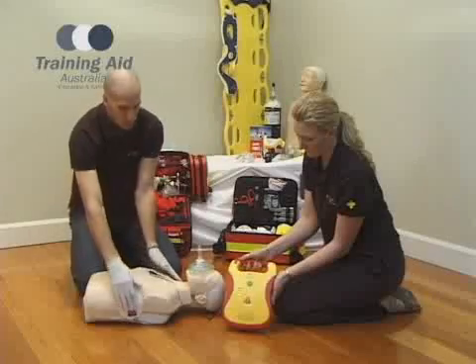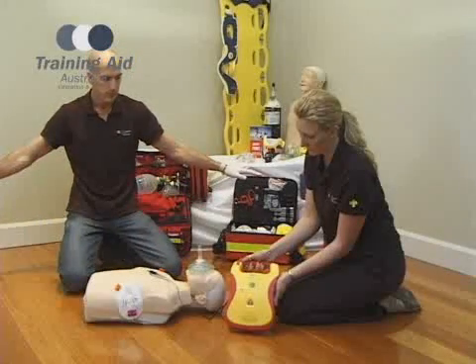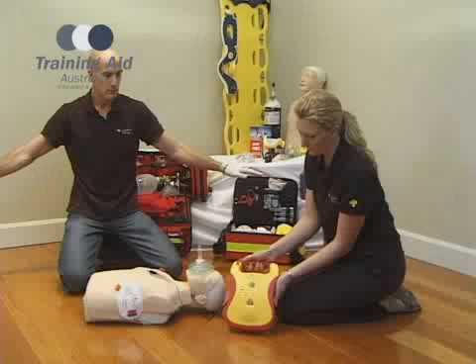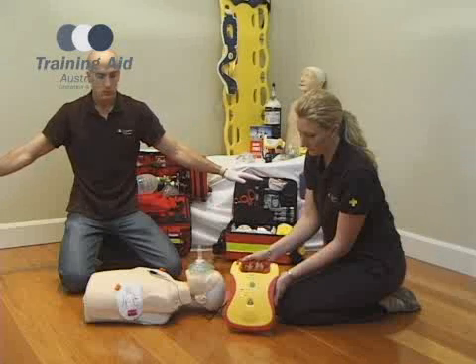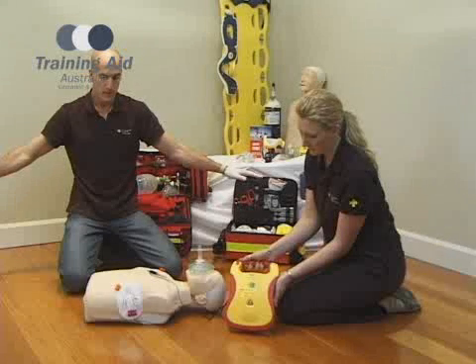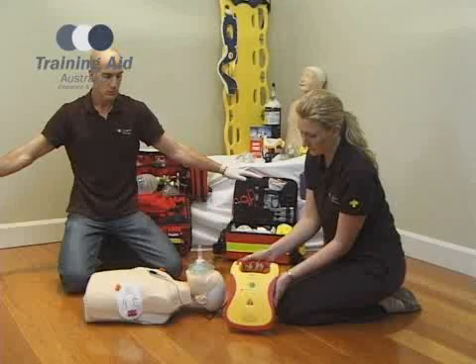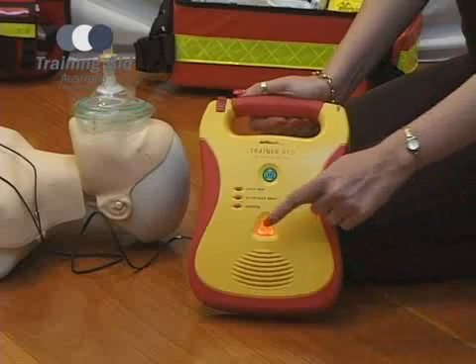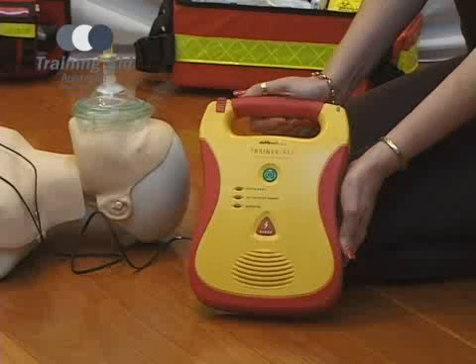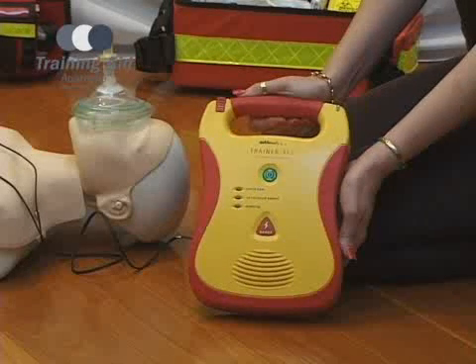The AED will then guide you through the process with voice prompts: 'Call for help. Analyzing heart rhythm. Do not touch the patient. Shock advised. Charging. Stand clear. Press flashing shock button. Shock 1 delivered. It is safe to touch the patient. Begin CPR now.'